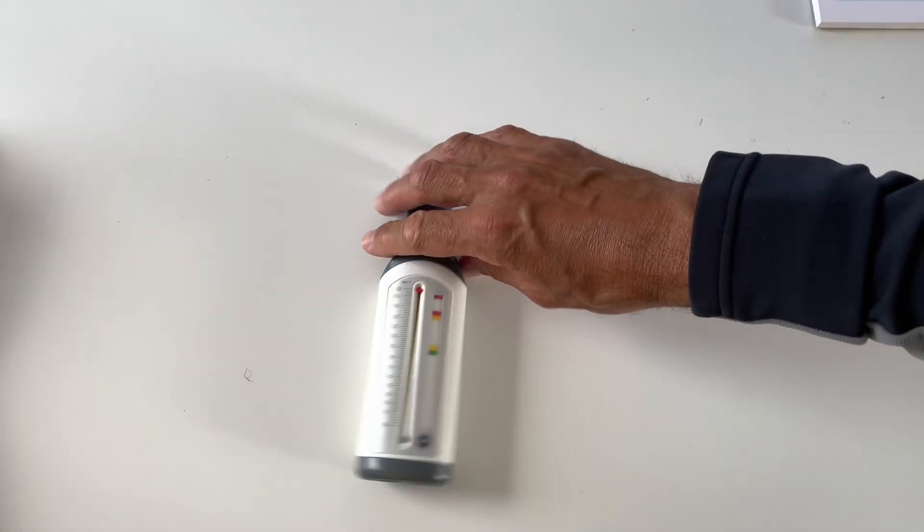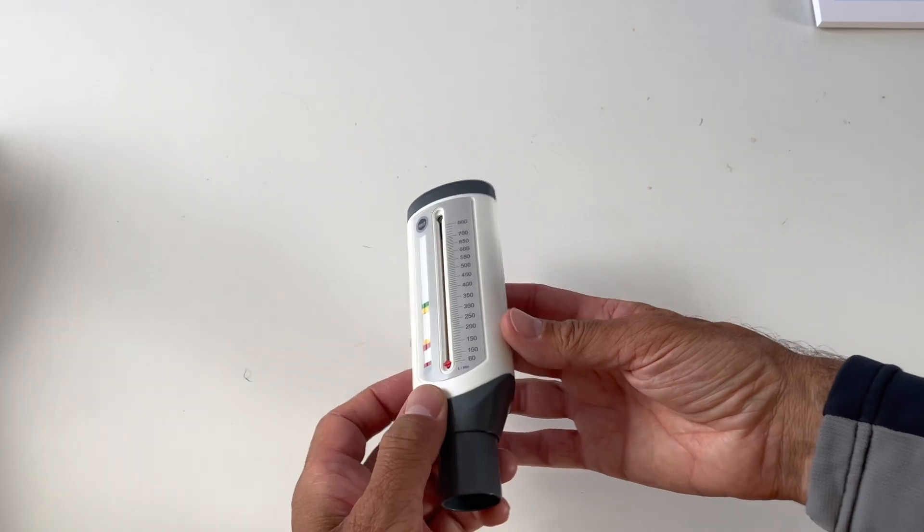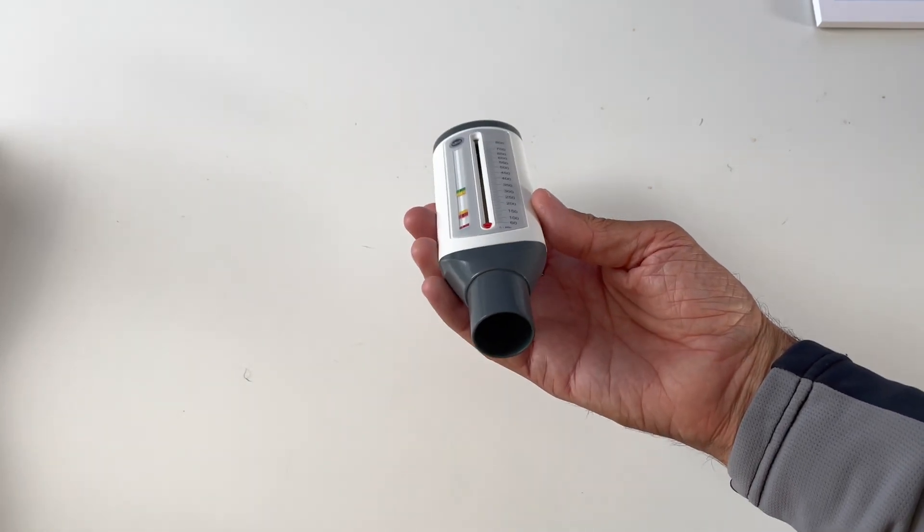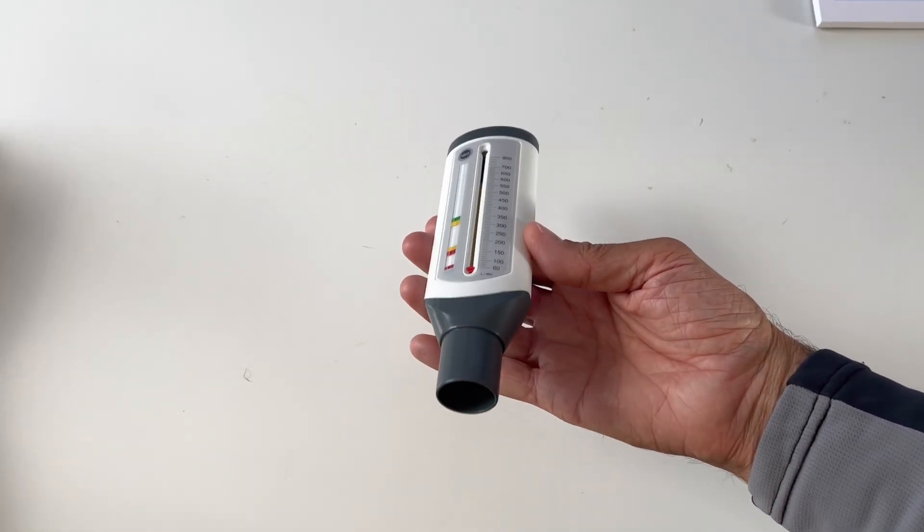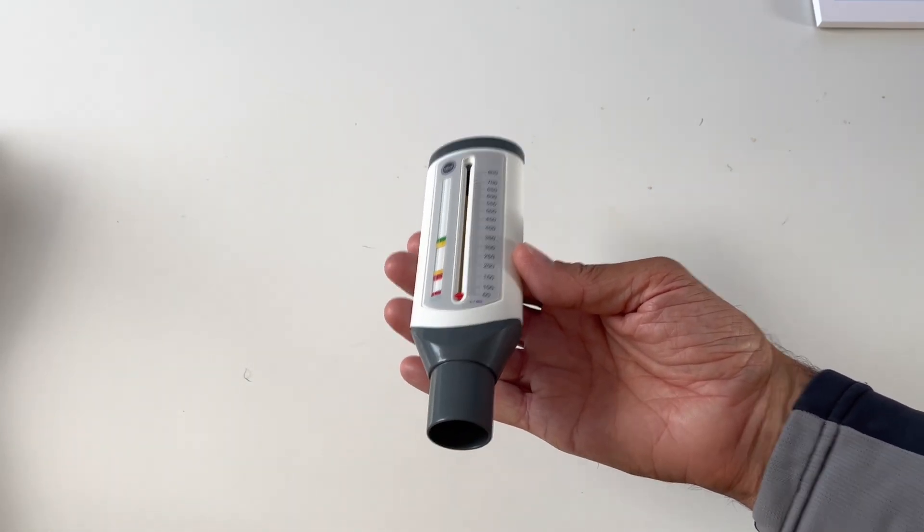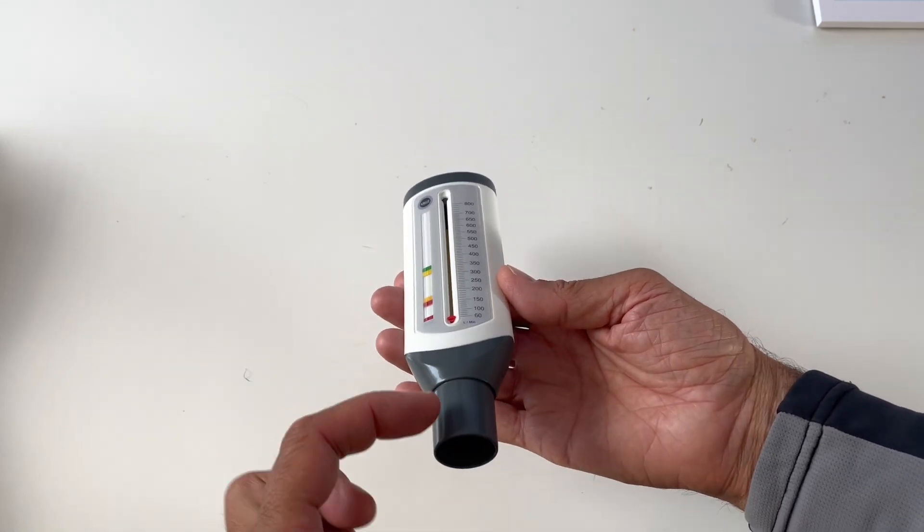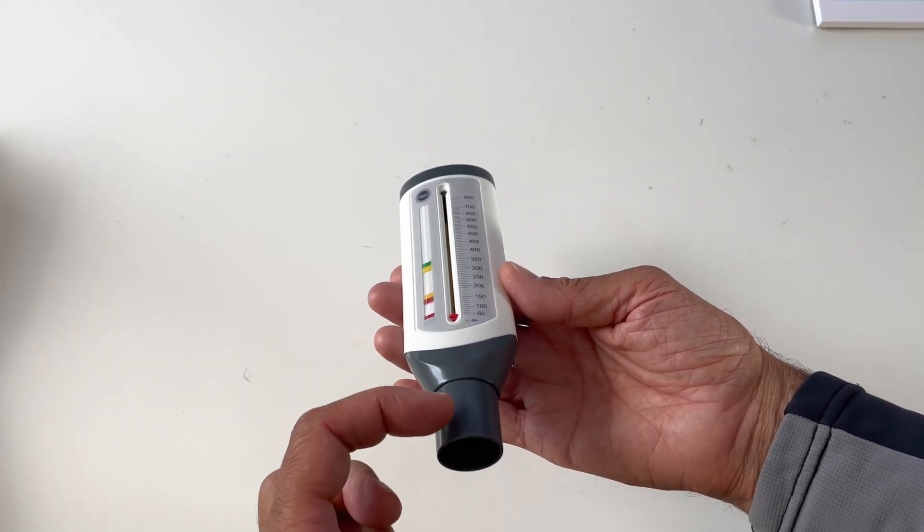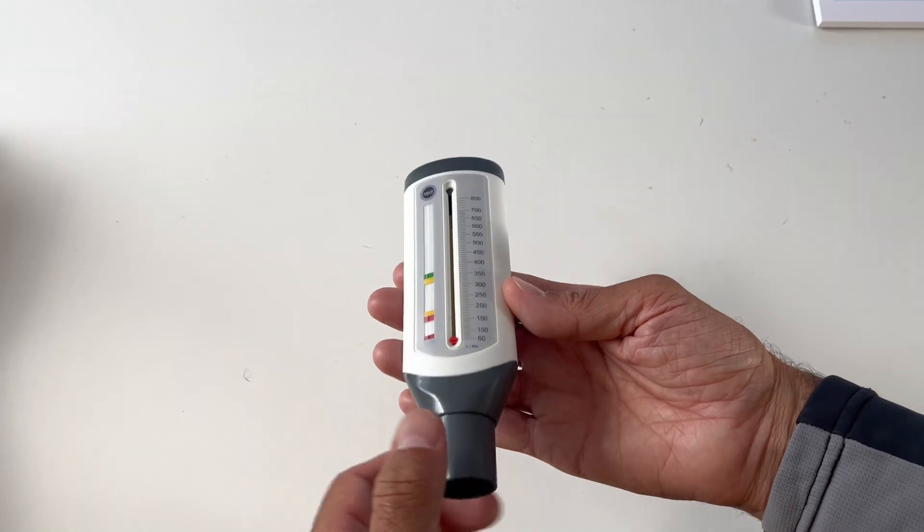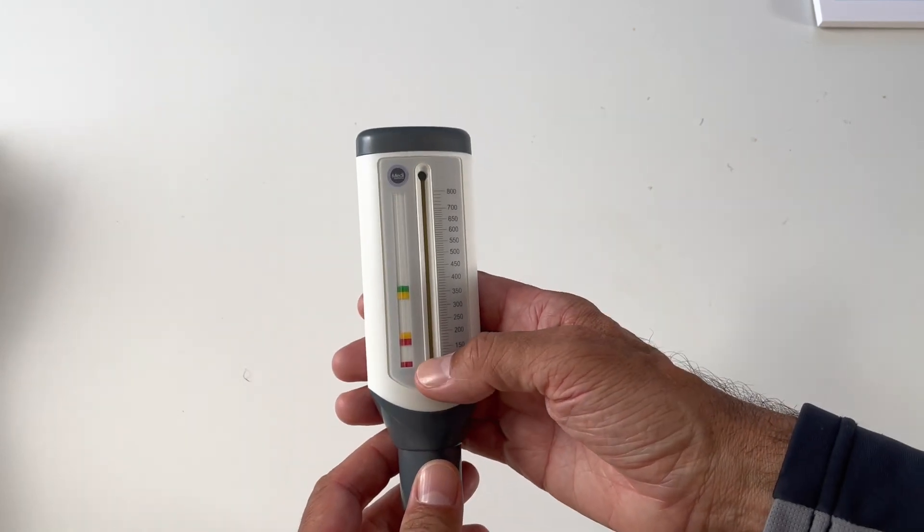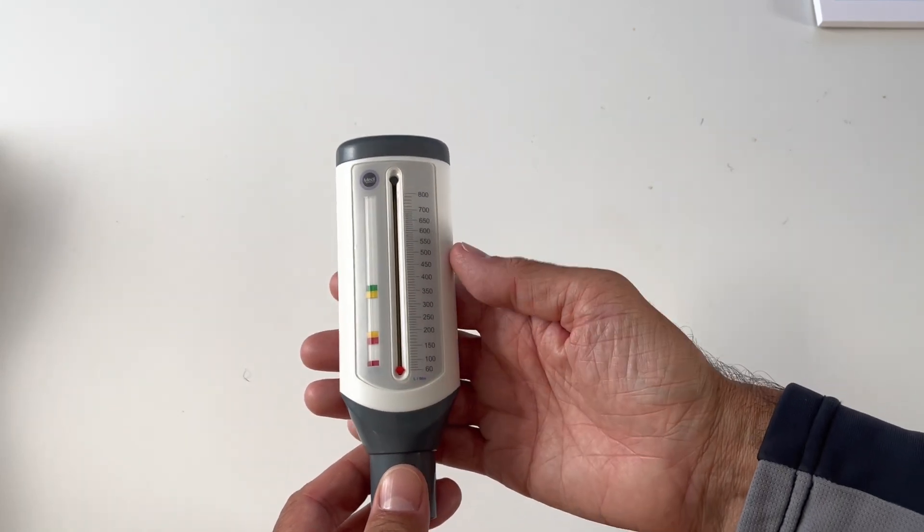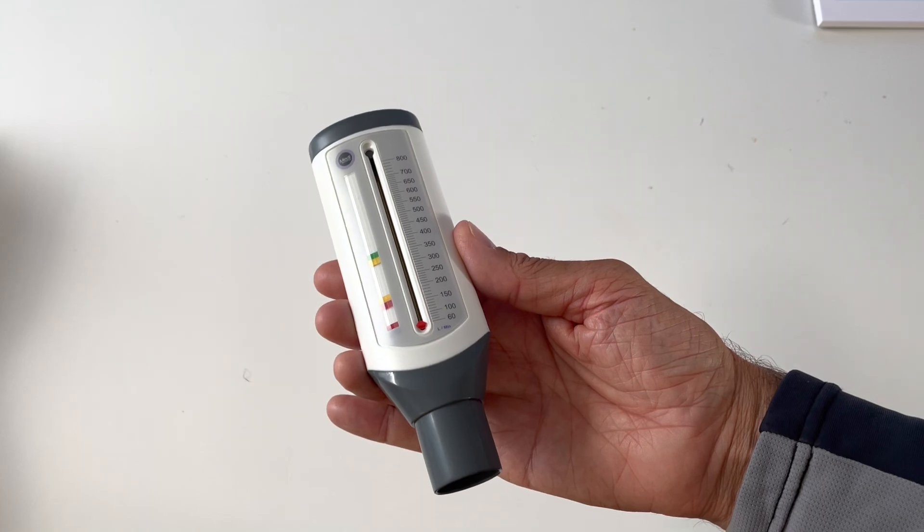Now, it's very simple. The one that you get from them to keep doesn't have a nozzle that's interchangeable. The one you use at the doctor's surgery has a disposable front end that they ask you to blow into. But all you do is you put this down here, then off camera I'm going to do a bit of blowing.